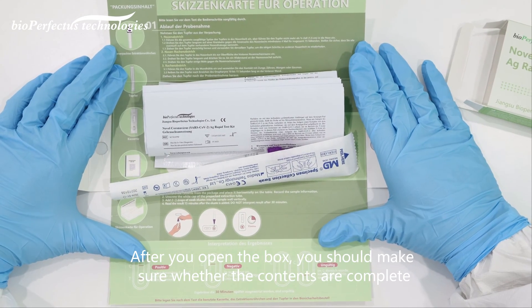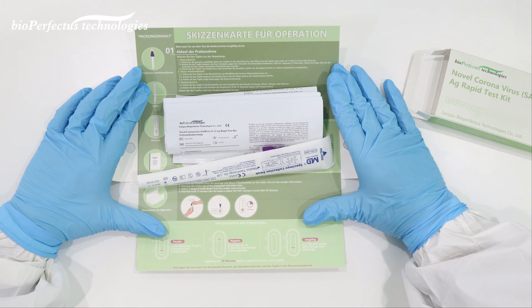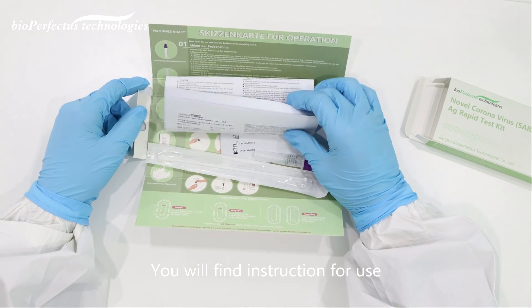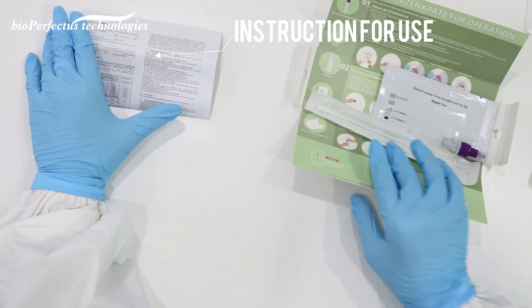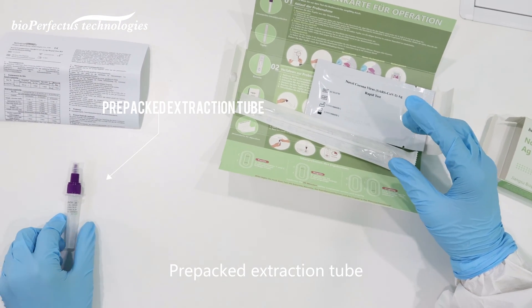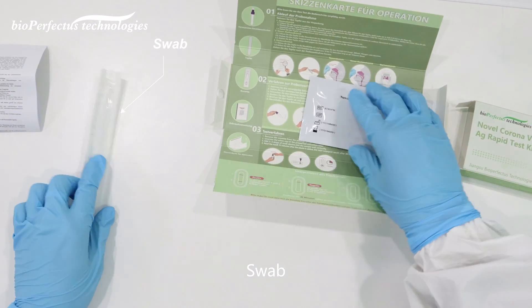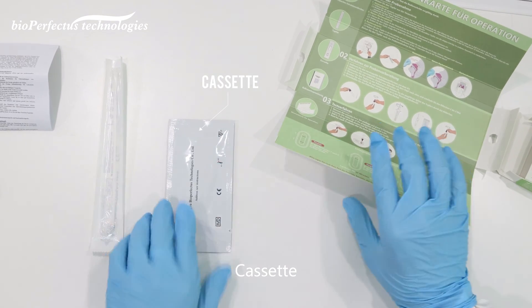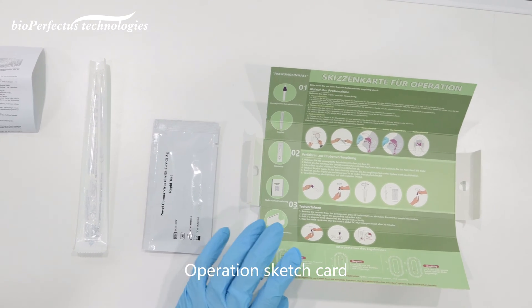After you open the box, you should make sure whether the contents are complete. You will find instruction for use, pre-packed extraction tube, swab, cassette, and operation sketch card.